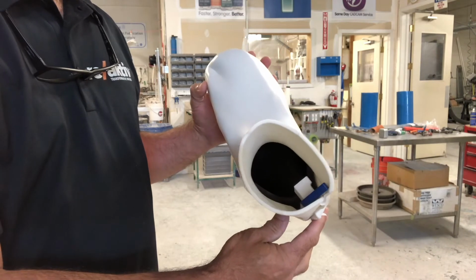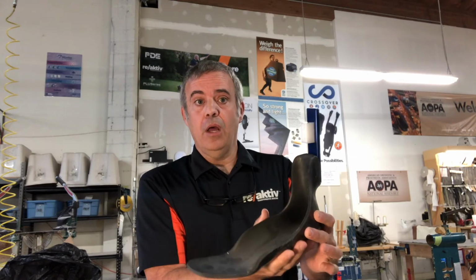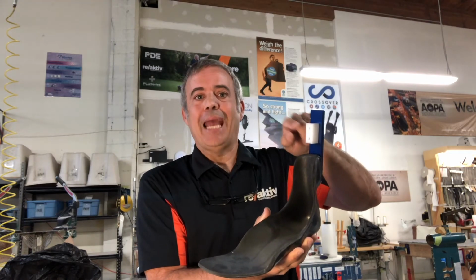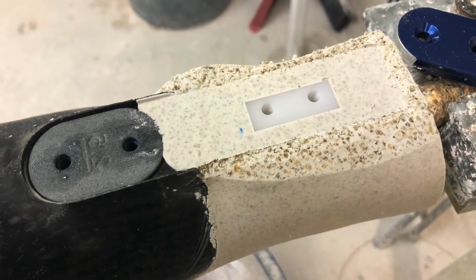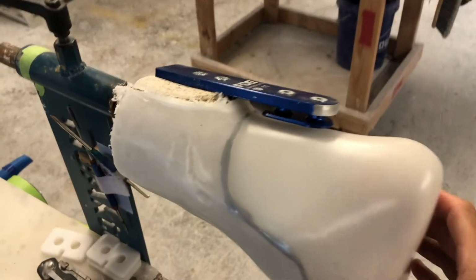This then we're going to take and we're going to enclose the foot plate so that we can pour a plaster model. When we do our enclosure, we need to make sure that we enclose it at least to this level so that this anchor block can then become captured in the plaster model. Once that plaster model has been generated, we now can remove the blue plate, we can take the foot shell off, and I'm left with a plaster model that gives me a reference point using the bar to accurately put the anchor back onto the new foot plate.